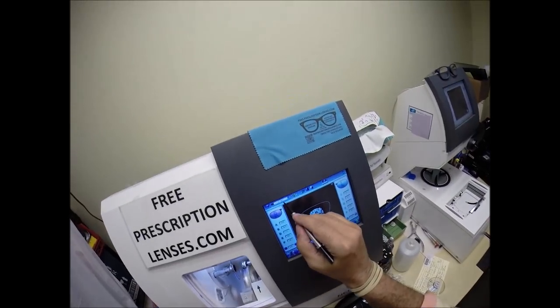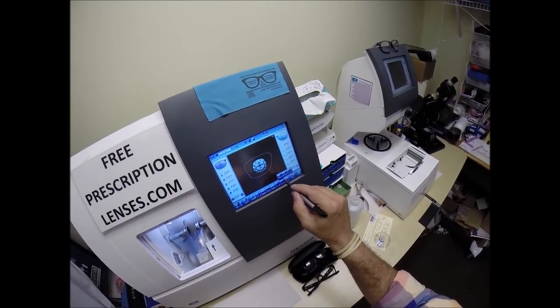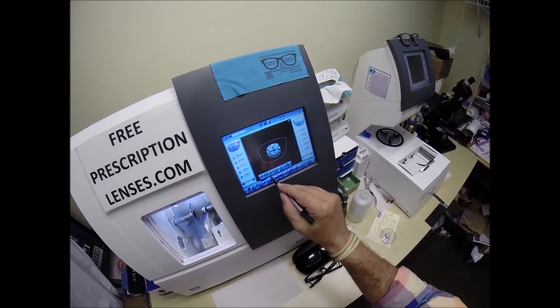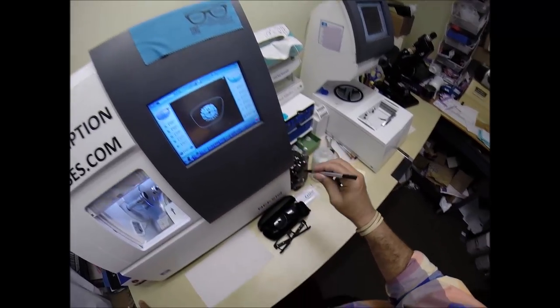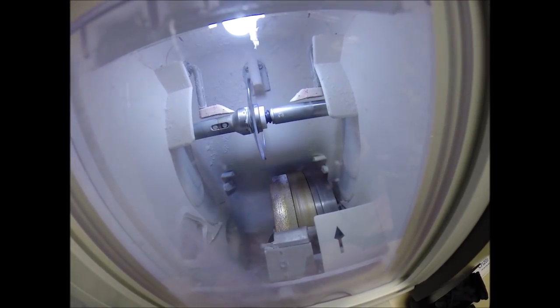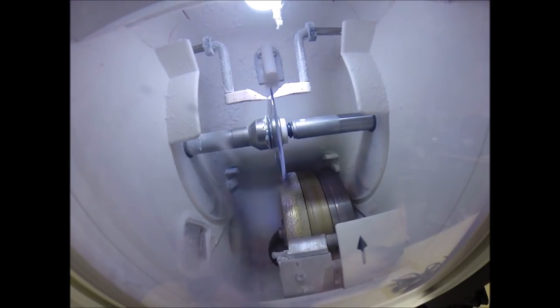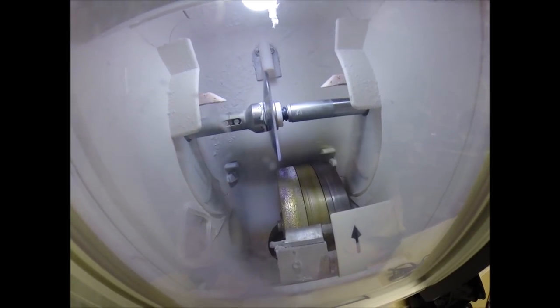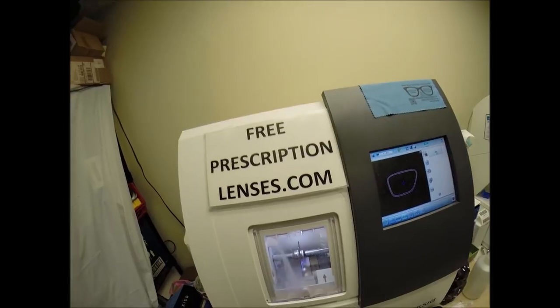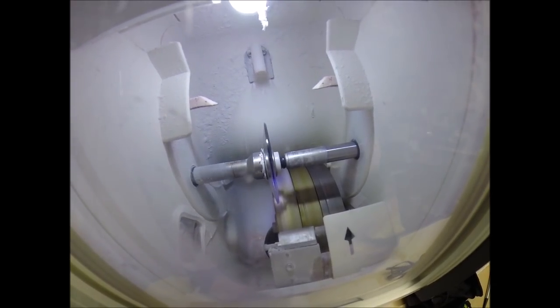I'm going to wake up the computer — secret agent 817 — that is the shape that I'll be cutting today. I don't want to polish the edge of your lens because it won't be seen. I am going to put a safety bevel on the rear concave surface of the lens. These are polycarbonate lenses. Hit the green arrow — the door closes, the clamp shuts, and then the lens is going to be traced by two white styluses making sure it's large enough to fit into the frame. As it goes around tracing the shape of the lens, it's measuring the thickness of the lens at every point to know exactly and precisely where to place the bevel, so you have the least amount of edge thickness showing. If you see light flickering in the background, that is water there to catch the optical sawdust as it comes off the cutting wheel.